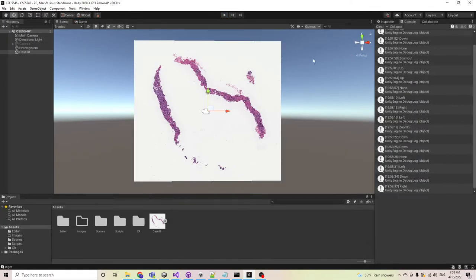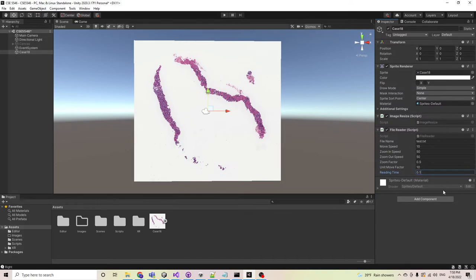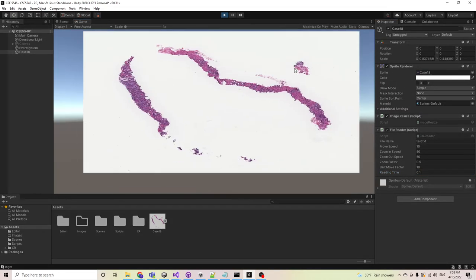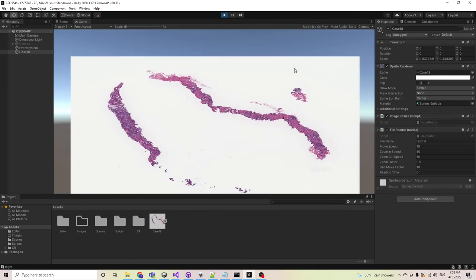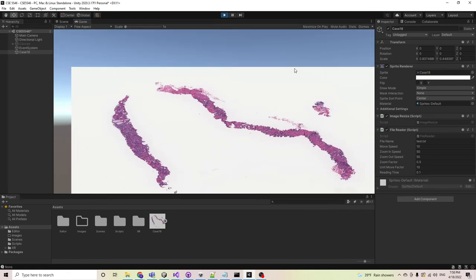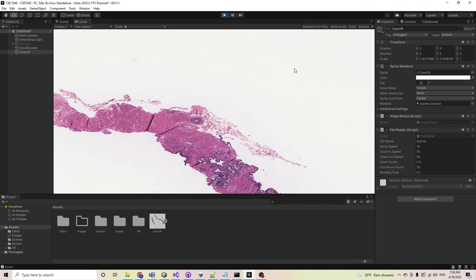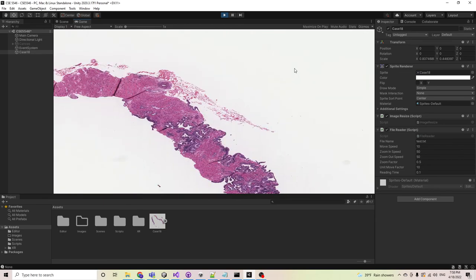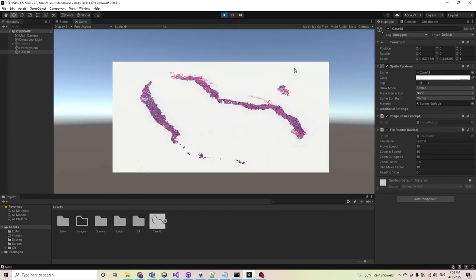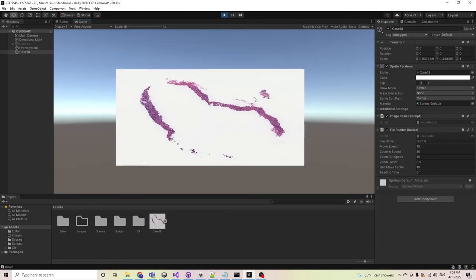So if we keep the reading time quick, for example, like 0.1 seconds per read, then you could see results like this. This represents the user's eye movement as we track the user's eye movement on the image.